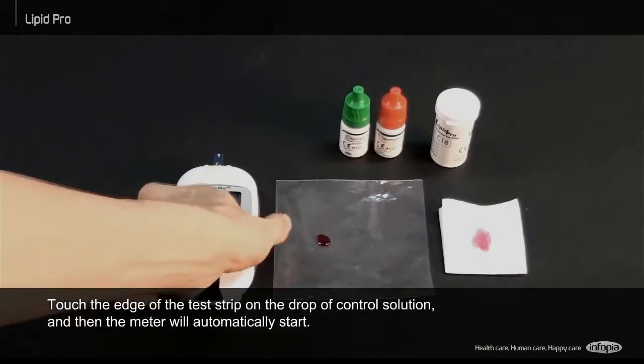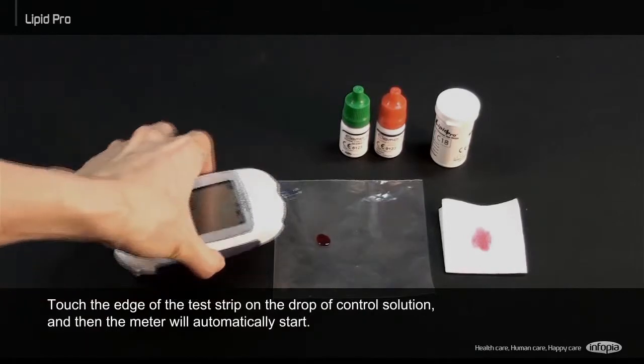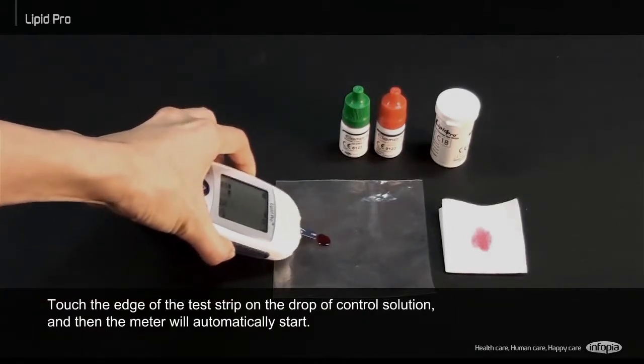Touch the edge of the test strip on the drop of control solution and then the meter will automatically start.